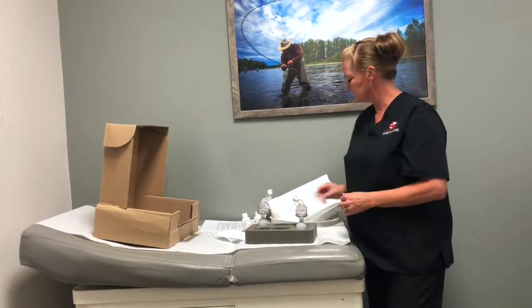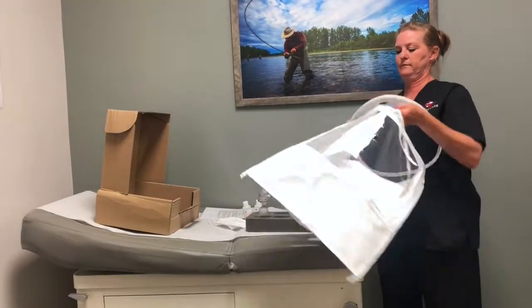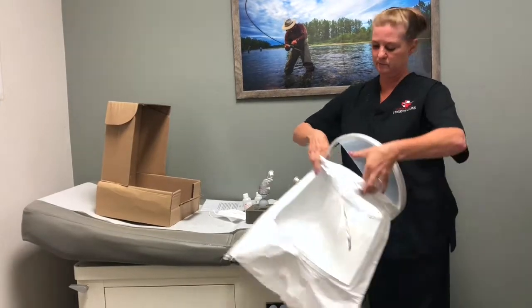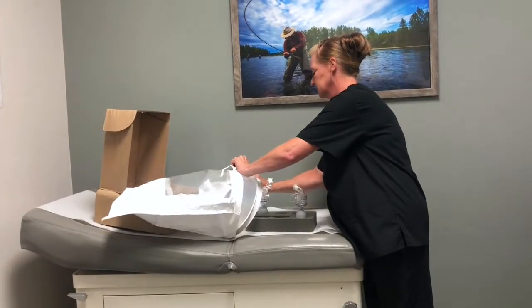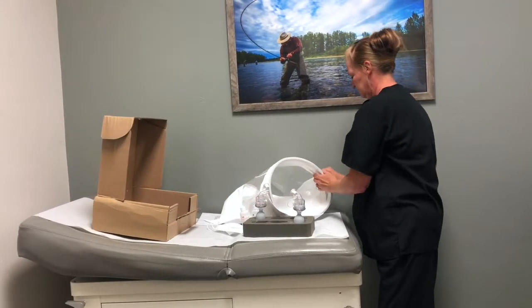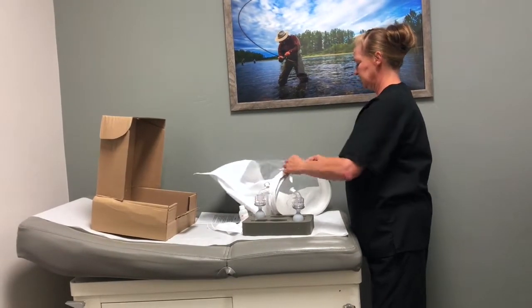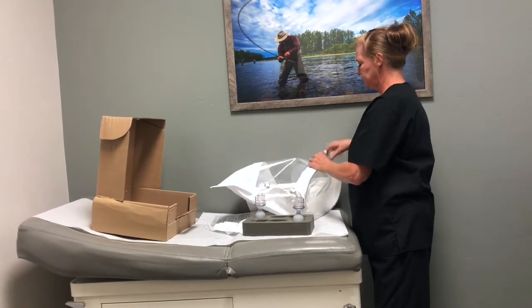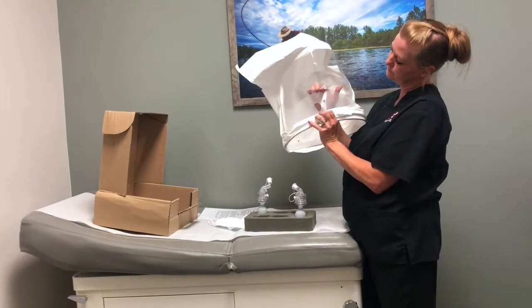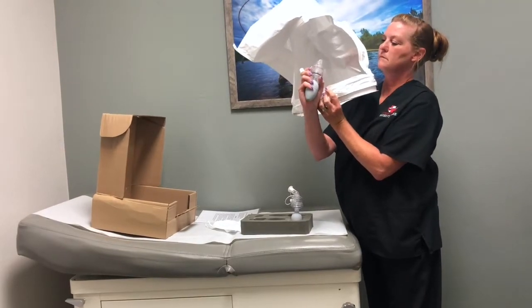Set them down and you're going to get your mask put together. This is the collar. This is the mask. There's a little rim here — you have to put the mask over top of the collar. It can be a little challenging. Then you're going to tie it to make sure that it doesn't come off anywhere. In the front of the mask you'll notice there's a hole here, and that's where you're going to stick your nebulizer when you go to do your fit test.